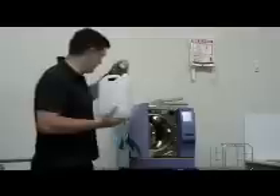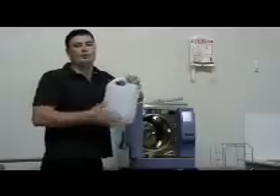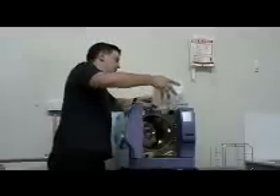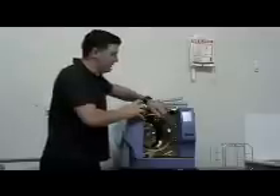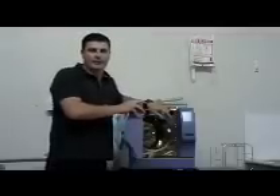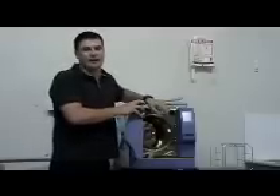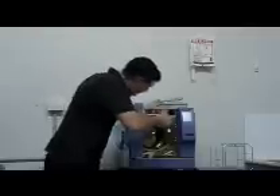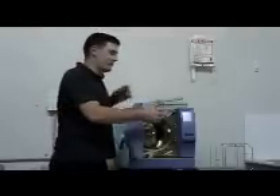With distilled water — it's important to mention that we do always recommend distilled water. Over the life of your steriliser, you will get optimal performance out of distilled water. Measure 80ml. It's worth noting that the funnel has measuring markers on it, but it does skip the 80 mark — it goes straight from 70 to 90. Common sense prevails: just measure in between the 70 and 90 mark to get the 80ml of correct water quantity to go into the steriliser. Once measured correctly, this water is then tipped into the back of the chamber — not down the drain tube that we have inserted to block off the drain hole, but just to the side so it will come to rest at the back of the chamber.